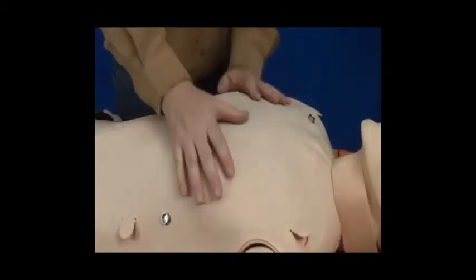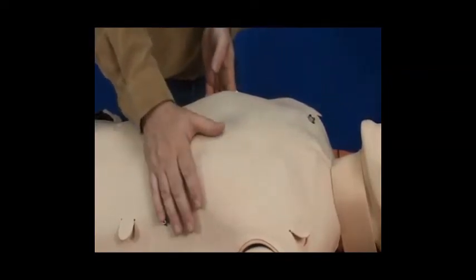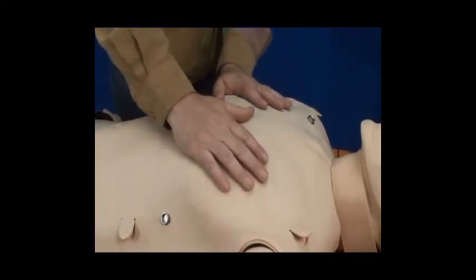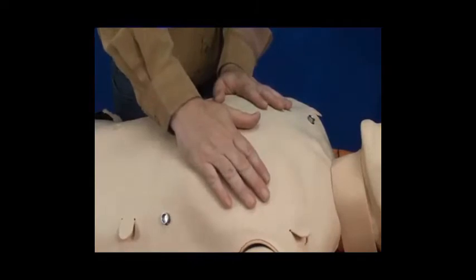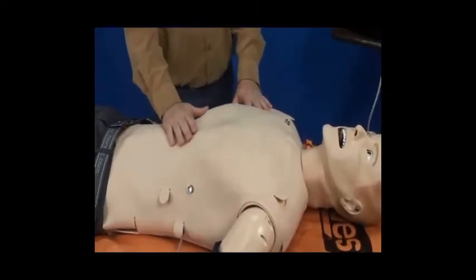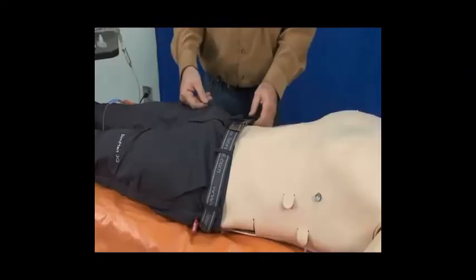So this mannequin is able to breathe and bring in air into the chest wall. So you have chest rise, and it will do it bilaterally. I can change it so one side will rise, the other side will not. This mannequin also has breath sounds. Gastric tones, gastric distension, it can also be utilized here as well.